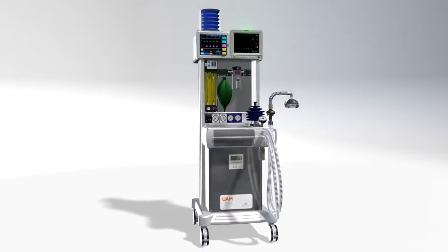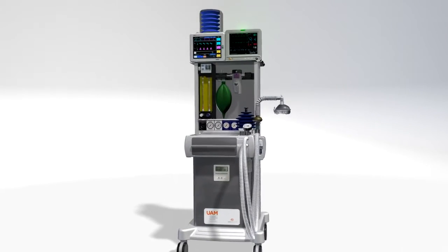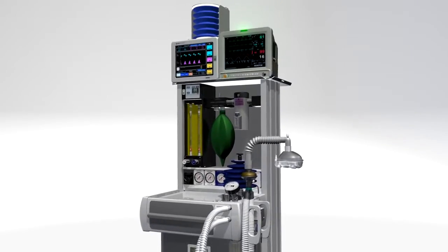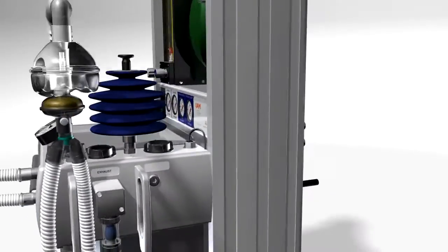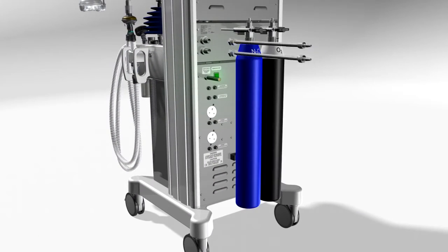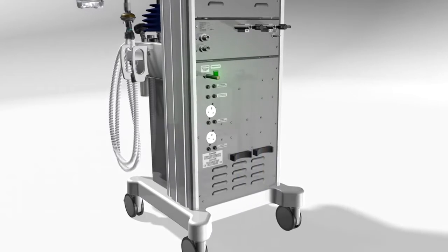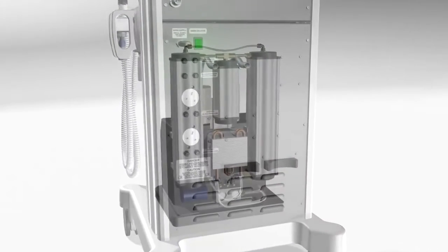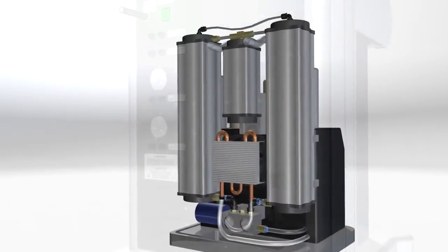The Universal Anesthesia Machine ensures that an adequate supply of oxygen and anesthesia is always available to meet patient demand, no matter what the environment. The UAM provides several ways to deliver oxygen, including connections for cylinder and pipeline. Most importantly, the machine produces its own oxygen using an integrated concentrator that enriches room air.